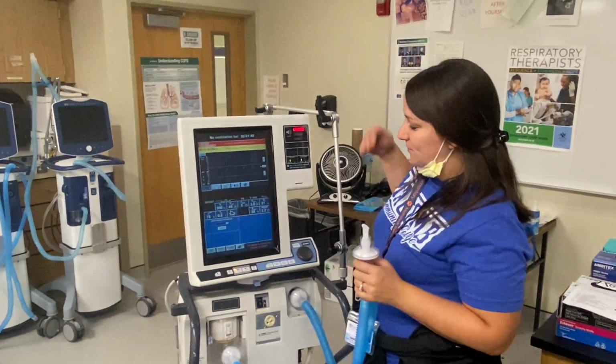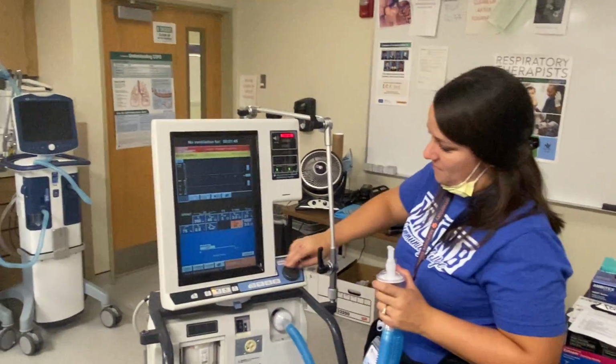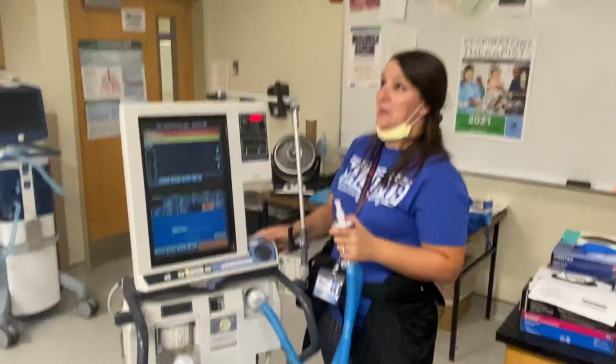All right. Let's focus on e-sense, the end of the breath. Let's see if my lungs can handle this.